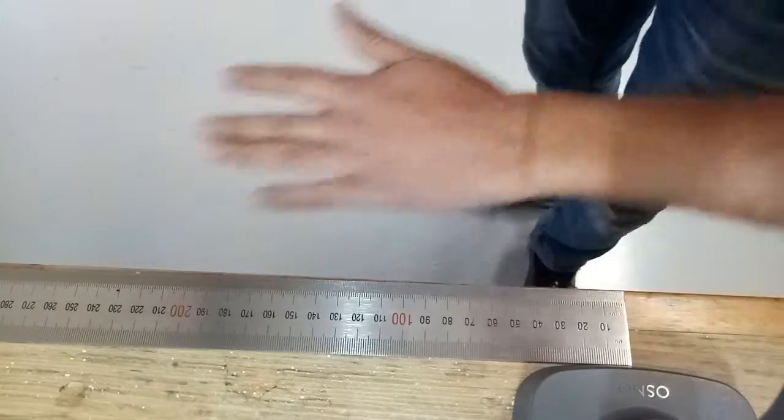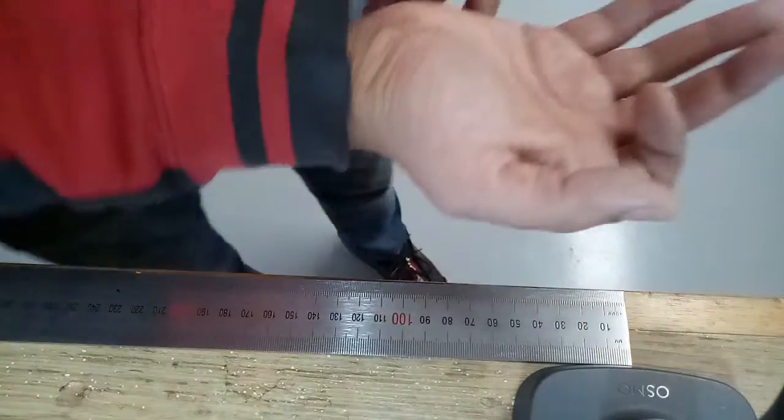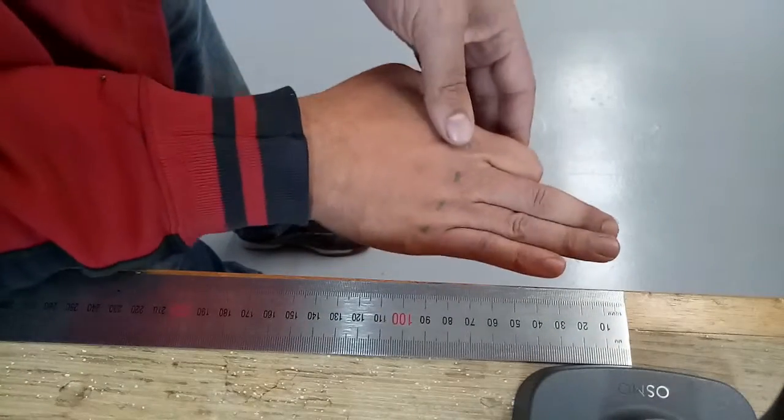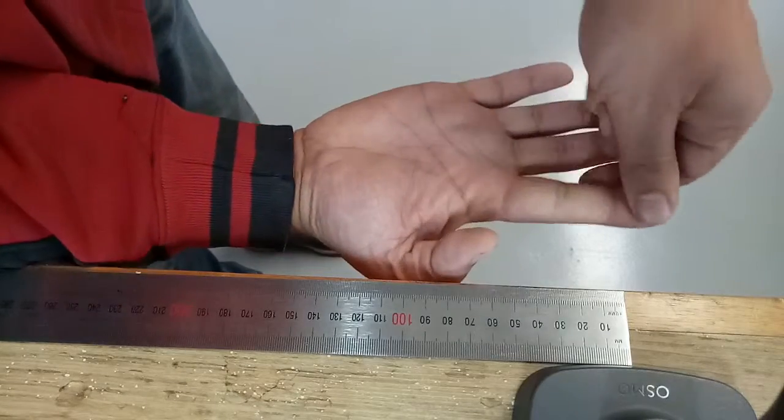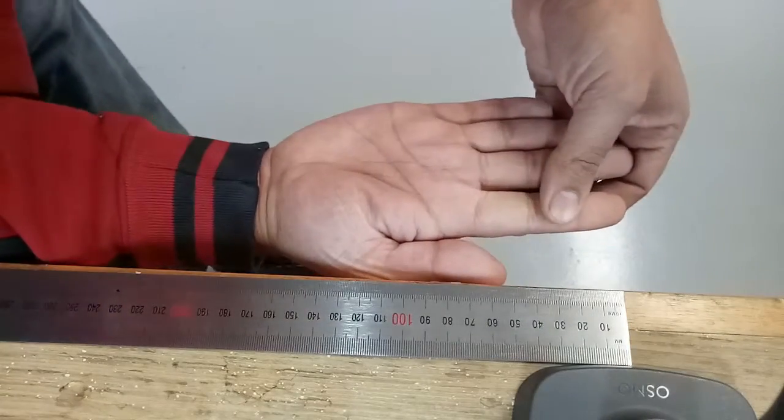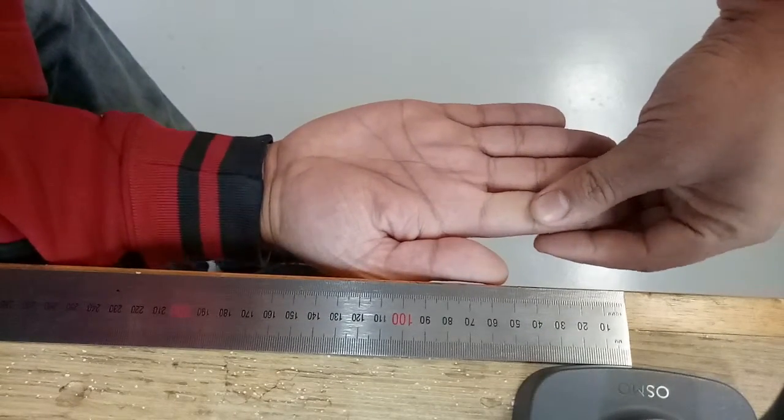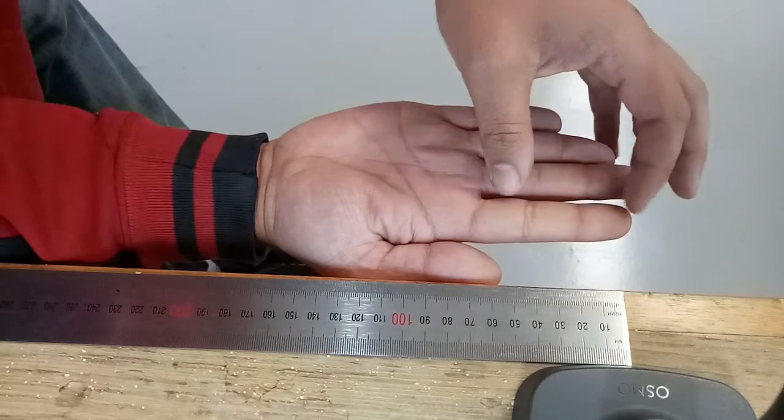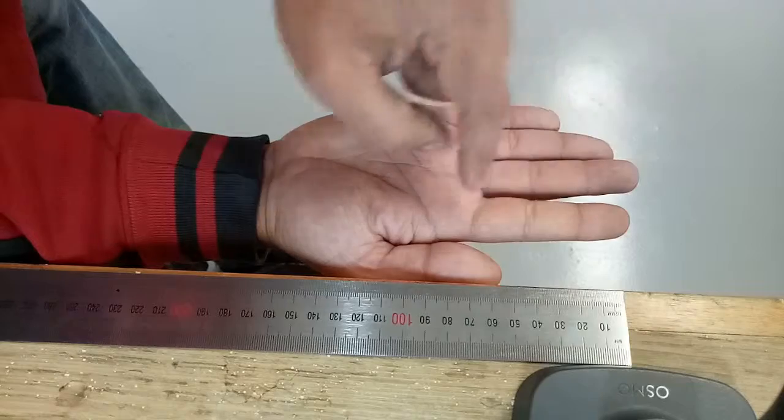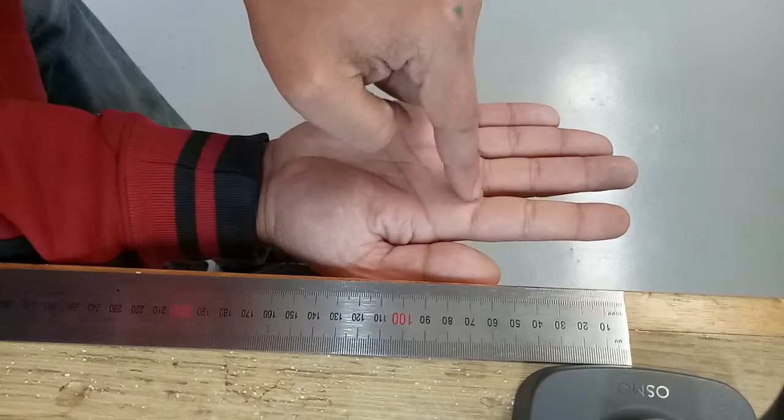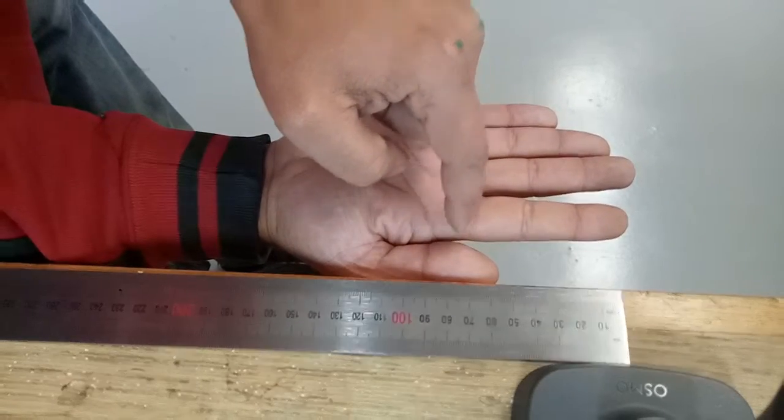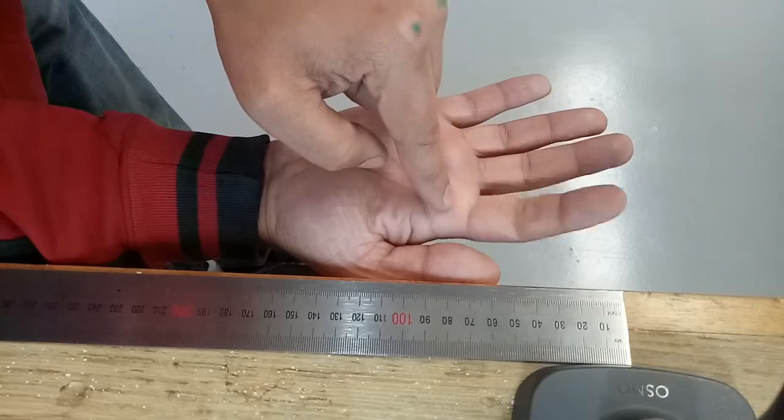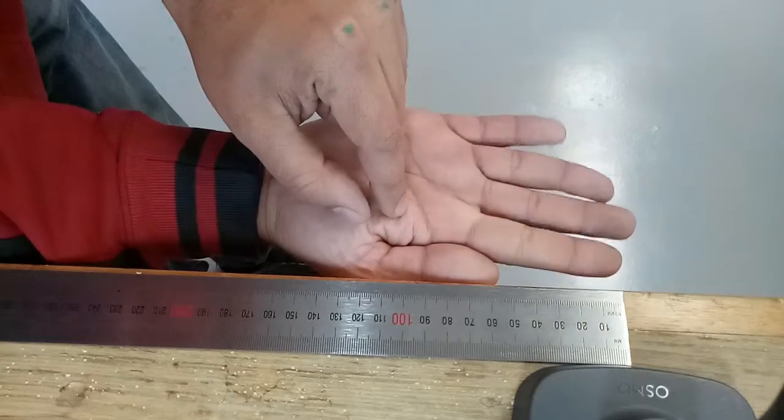The third photo that we require is again of the affected hand. This looks quite difficult because I still have my finger in place, but the only thing we're really interested in here is the length of the stub to this line right here, so we can design our finger so that it will fit correctly.